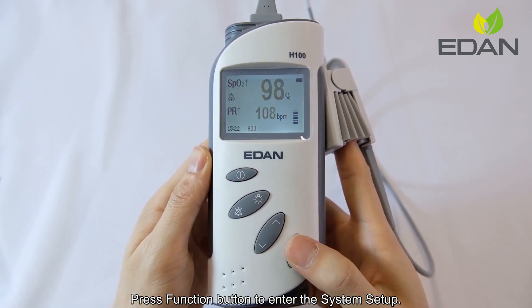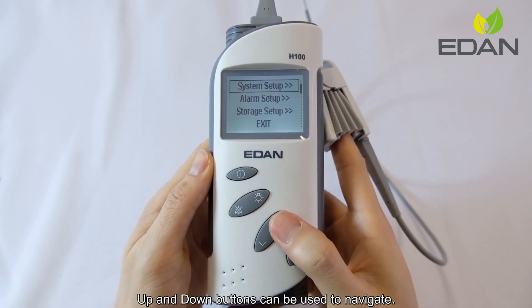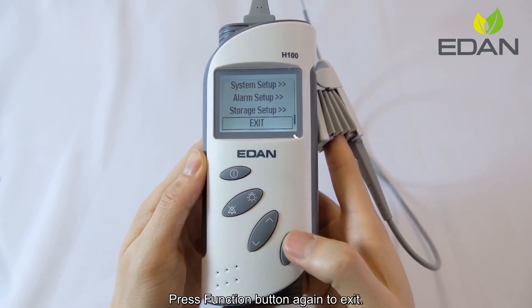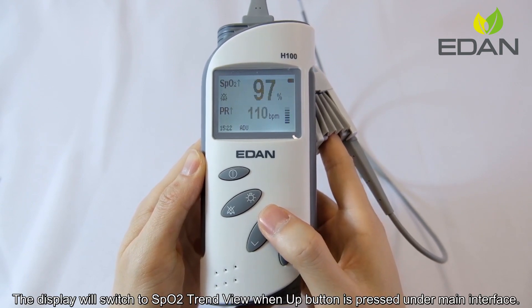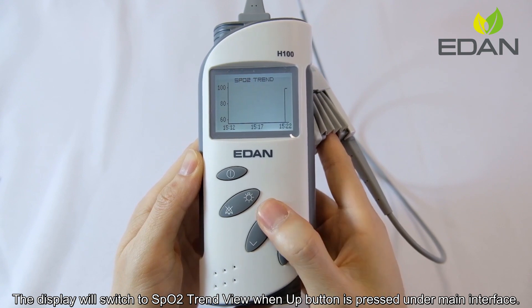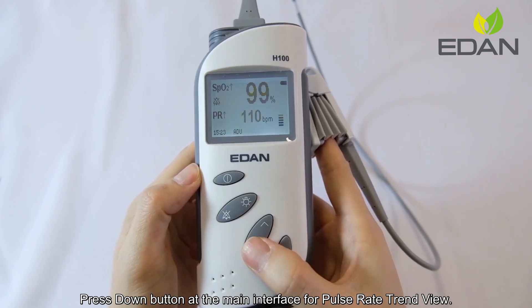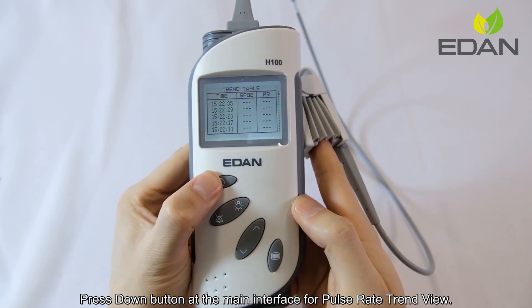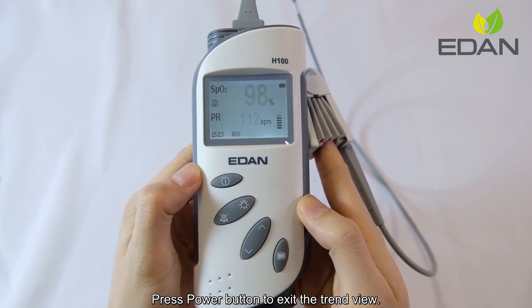Press the function button to enter the system setup. Up and down buttons can be used to navigate. Press the function button again to exit. The display will switch to SPO2 trend view when the up button is pressed under the main interface. Press the down button at the main interface for pulse rate trend view. Press the power button to exit the trend view.